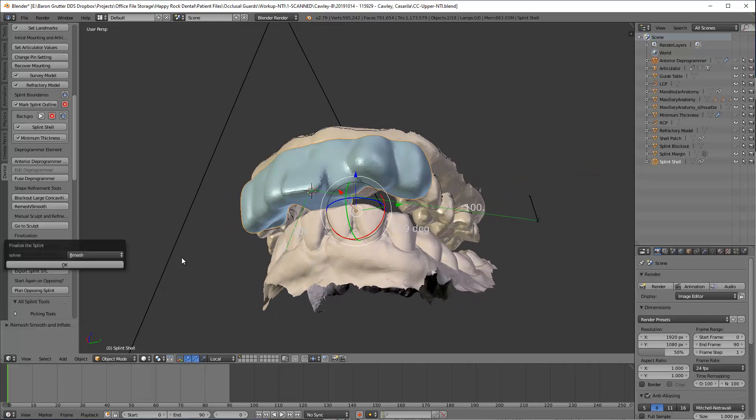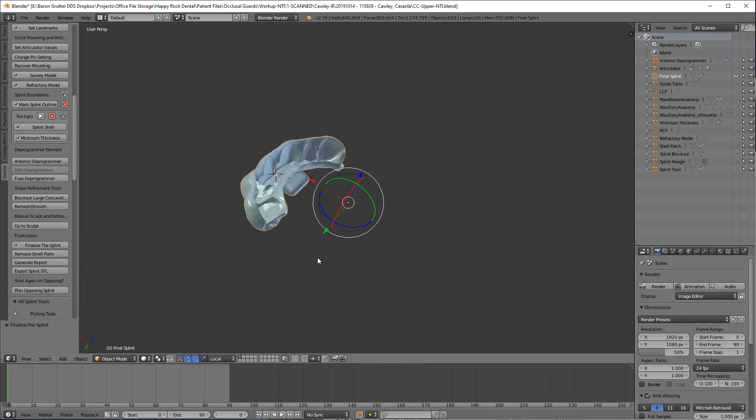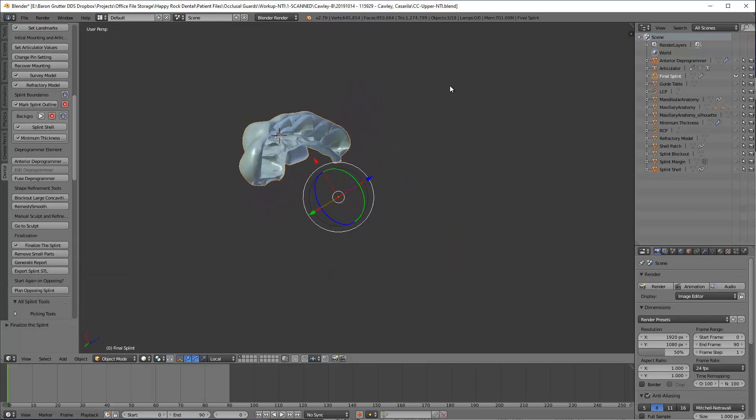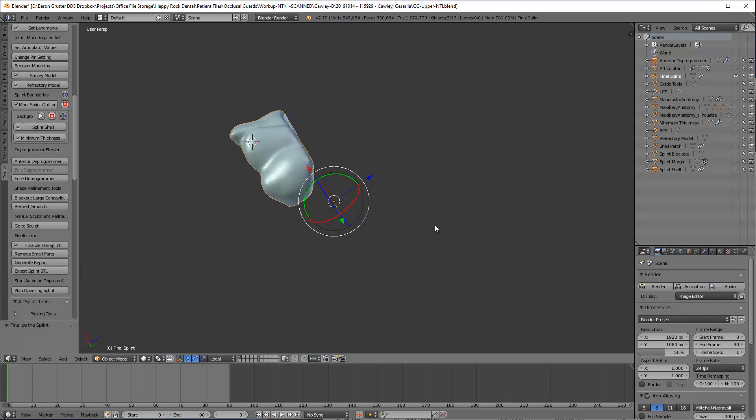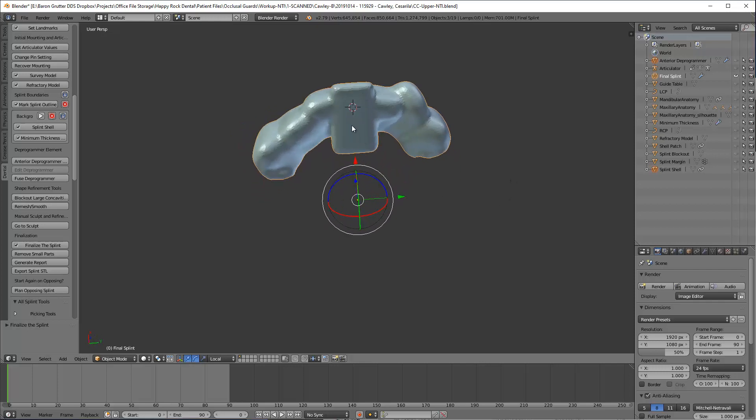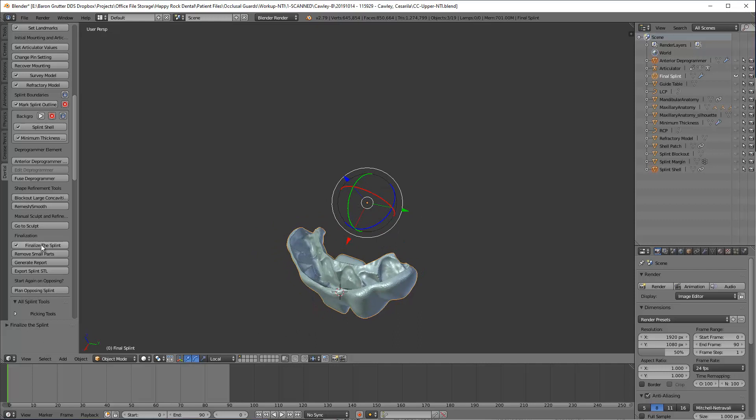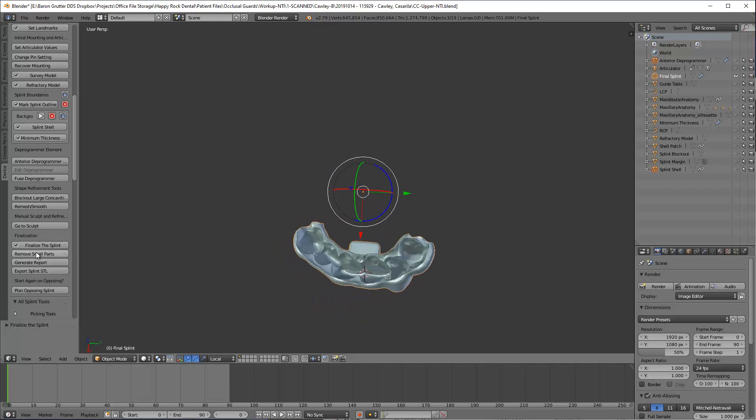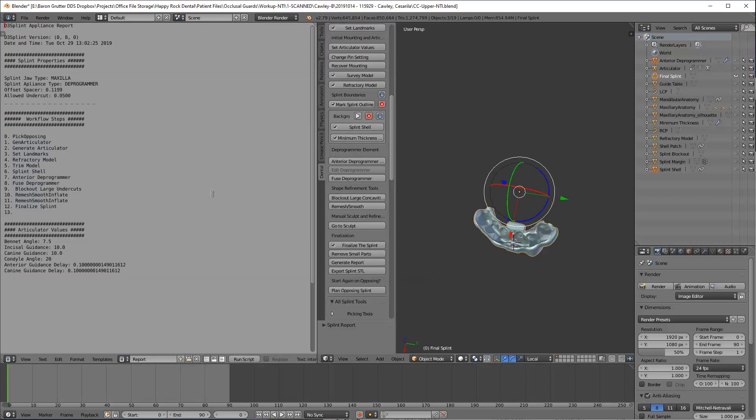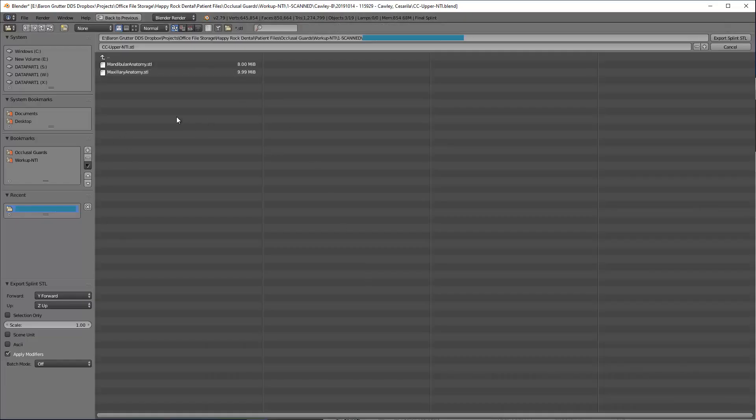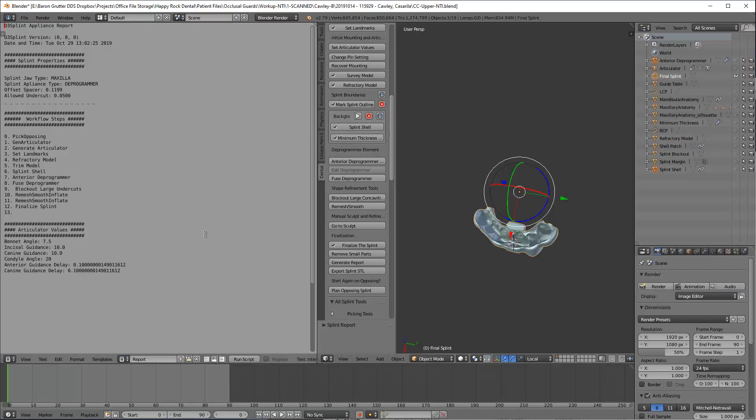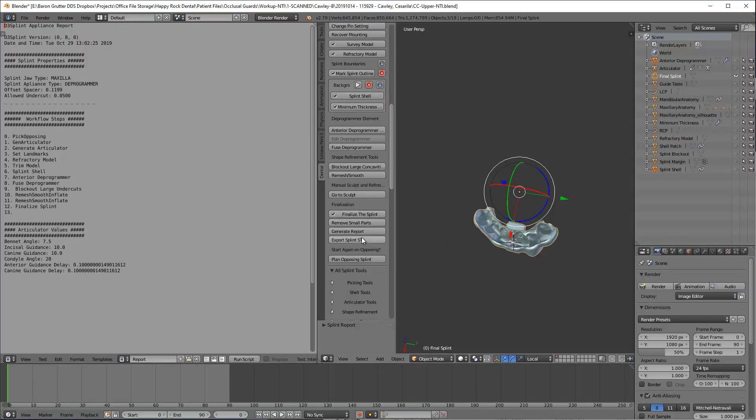And then go to finalize splint. And now what's it doing? It's basically subtracting the teeth from the inside. And now we have what we need. That's what we're looking to make. And I am ready to get this printed. So all I have to do now here is, if you had little things floating around, you can click remove small parts, which basically there aren't any in mine, but that's what it's there for. Generate your report, which spits out this thing. And now when I export my STL, it'll save that as a file as well. It'll export a note, it has all your parameters in case you need to get support or something. Go ahead and that's it. I'm all done.